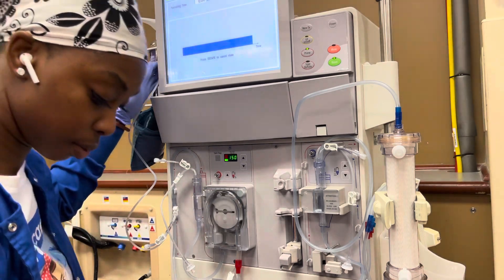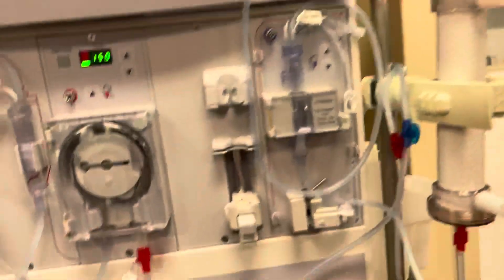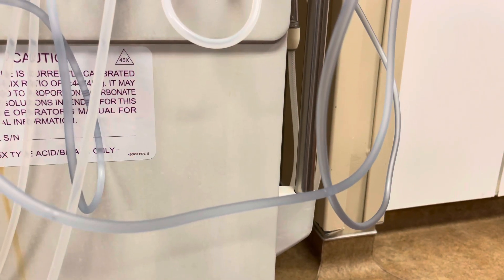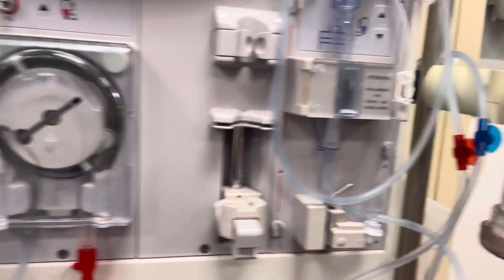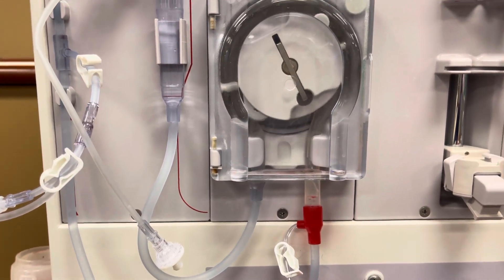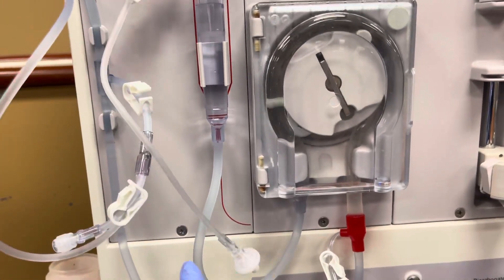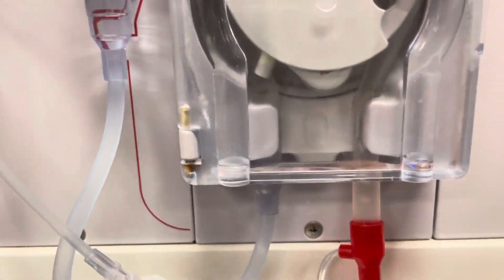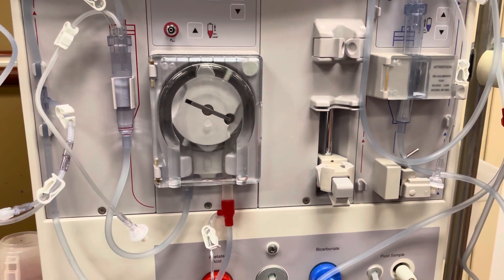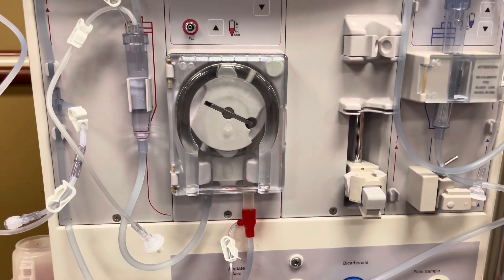It's going to call the wheel — I cannot think what it's called. Just wait a second, you see it's priming. I might have to do another one because that doesn't look right. Sometimes the lines are messed up. I don't know if y'all saw how it was tangled around here — sometimes the lines are messed up like this. By the time I test this machine, if it doesn't pass the test, then I'm just going to restring it because that's going to mess me up big time.